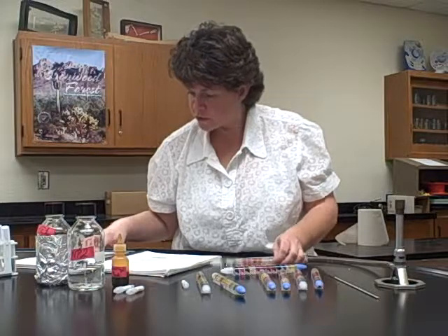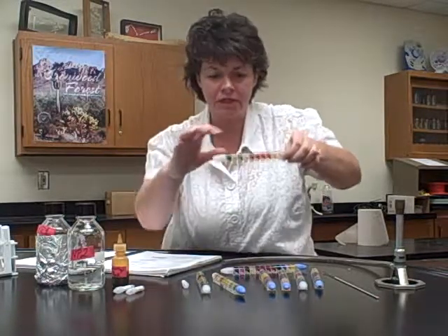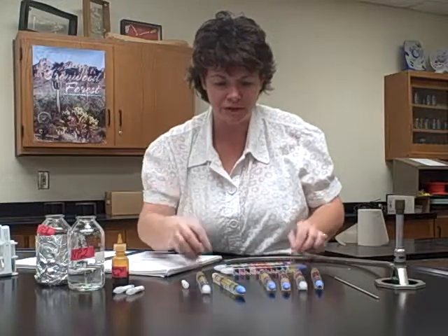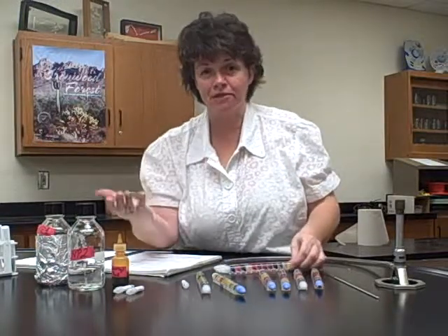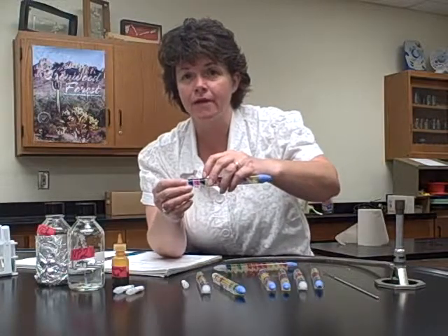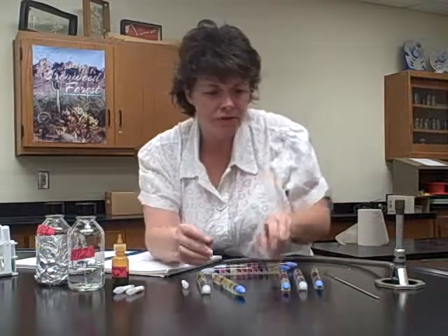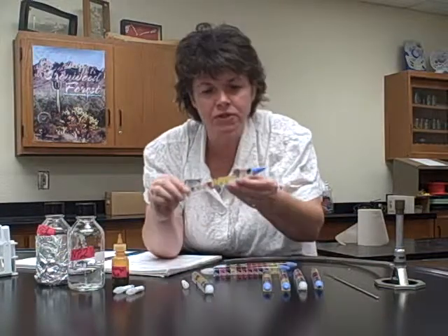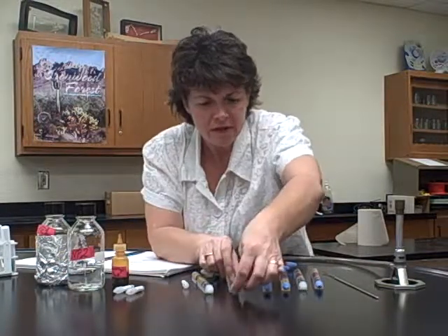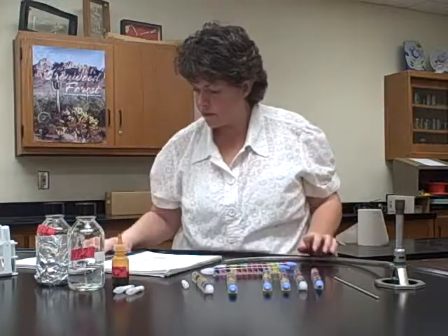The dulcitol is a different one. If your compartment goes from green to yellow, that's one kind of result. If it turns black, that's a different kind of result. Of course, you're not going to be able to tell if it's yellow if it has the black. Like this one's still green. That one's starting to turn yellow right there. So it doesn't look like many of them are changing for that one.